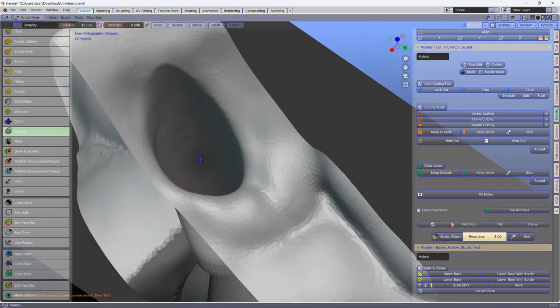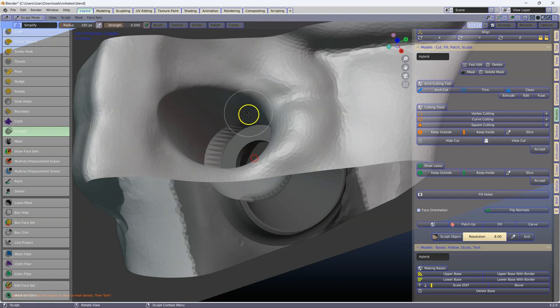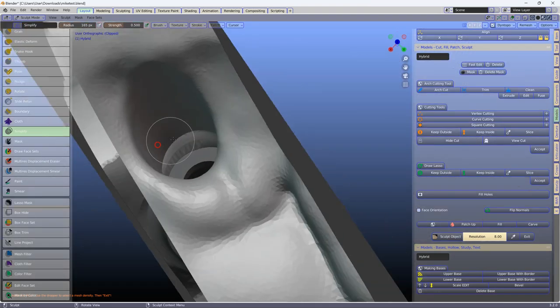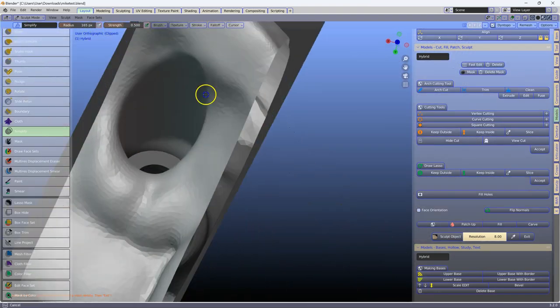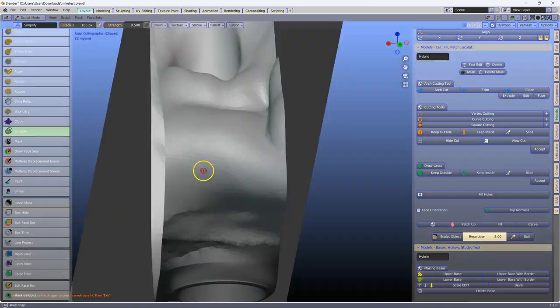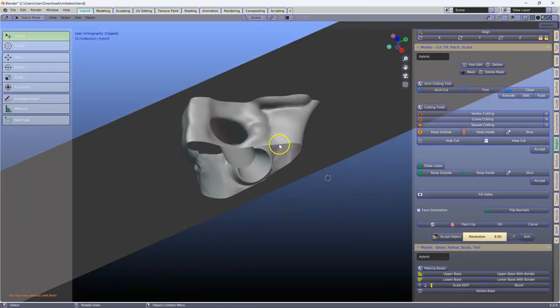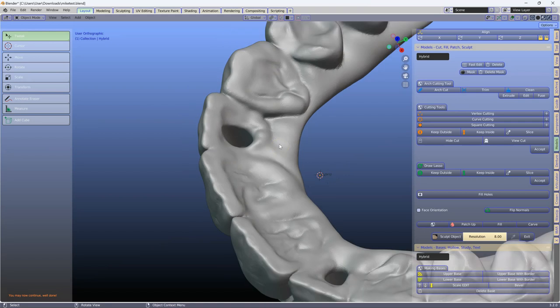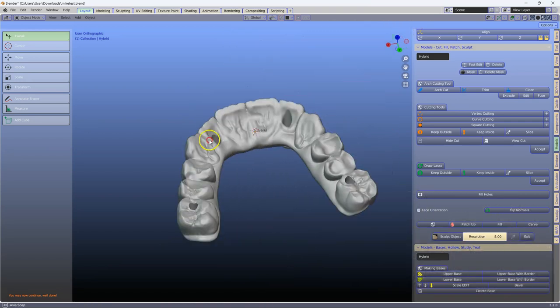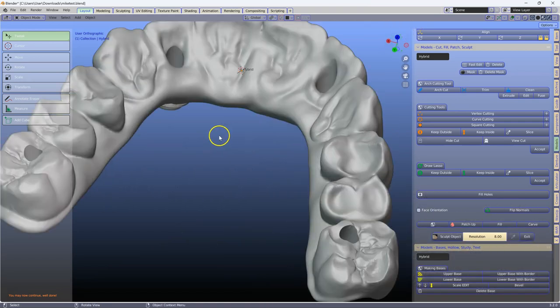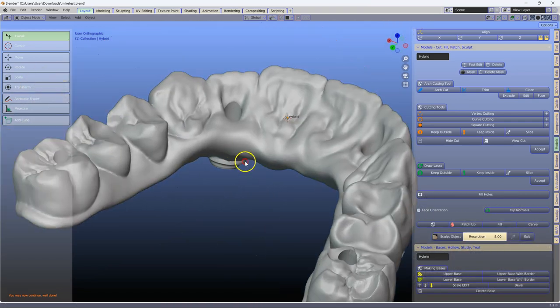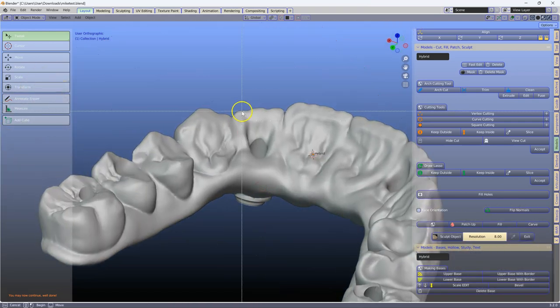As I said, I don't like doing this, but we have to do it, we don't have a choice. Exit, Alt-B to get out of it, go to the next one over here, which is also defective.